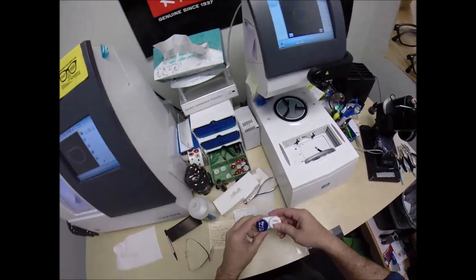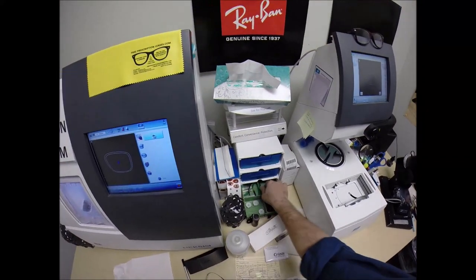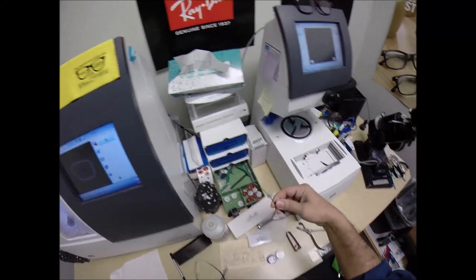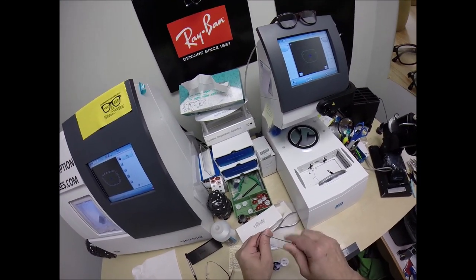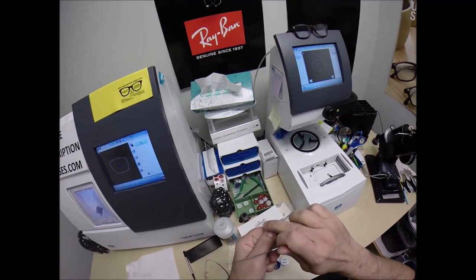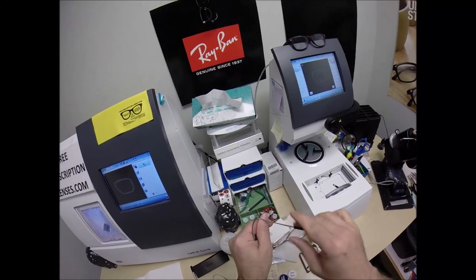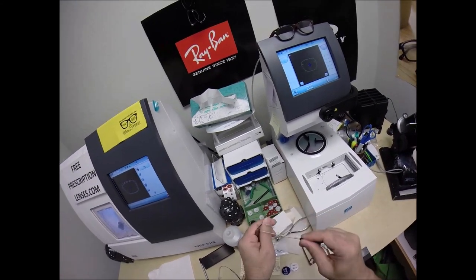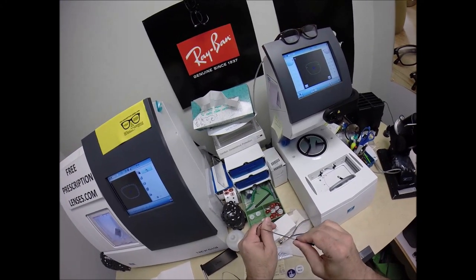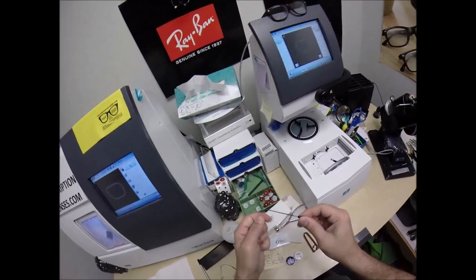Everyone wants to know how these Silhouette lenses go together, so let me get all my tools ready — my cigar cutter, my pliers, and my cutters. I'm going to use this to ream out the holes first. I always like to smooth everything out. A lot of people who've gotten Silhouettes eventually form little tiny cracks in the edge of the lenses — that's because whoever cut their lenses did not do this. Same as the safety bevel going around the edge, I want to smooth out any rough surfaces so there's no tension at any point on the lens.